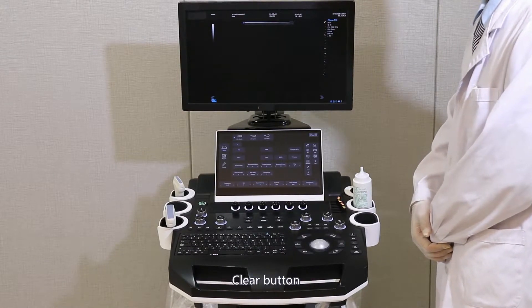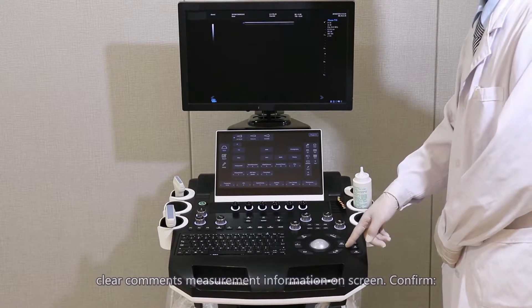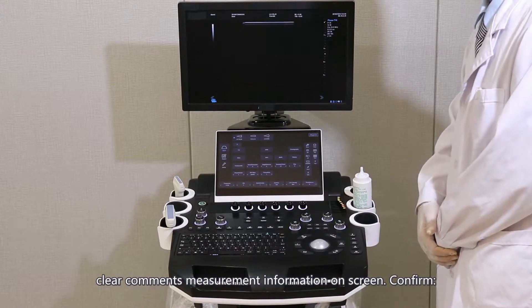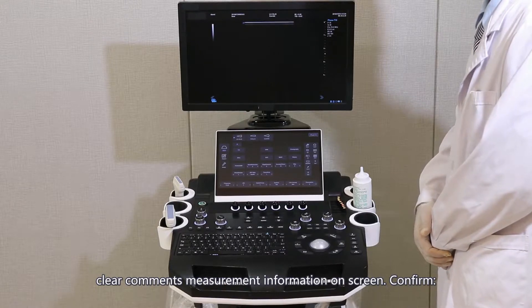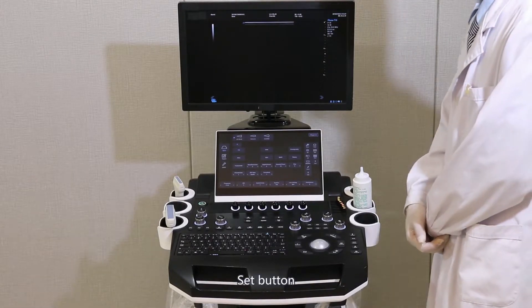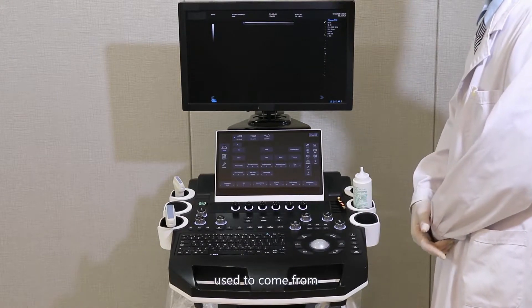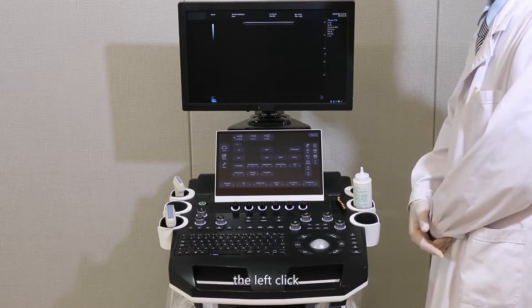Clear button: clears comments and measurement information on screen. Confirm/Set button: used to confirm with the left click.